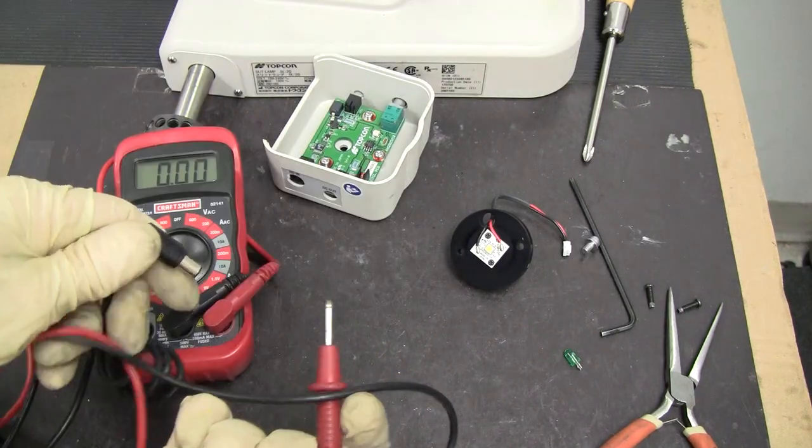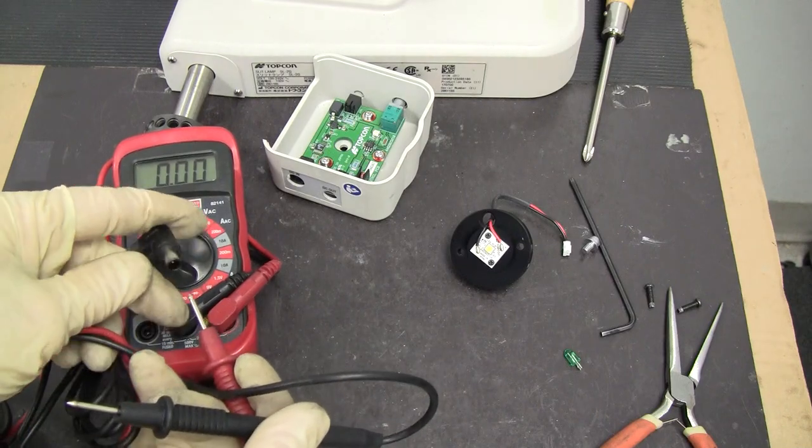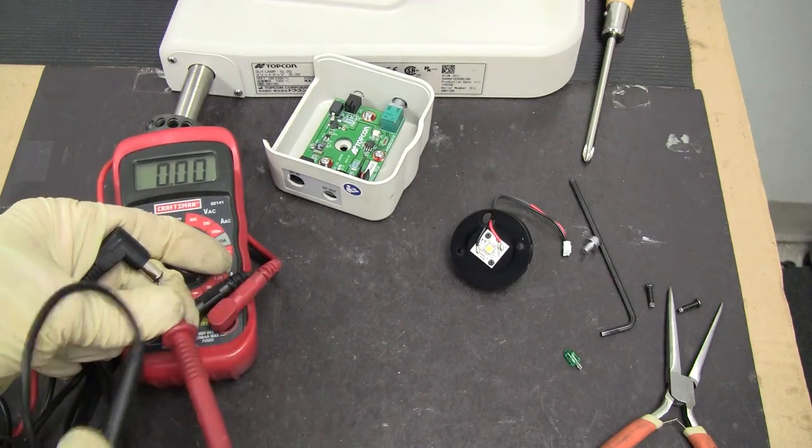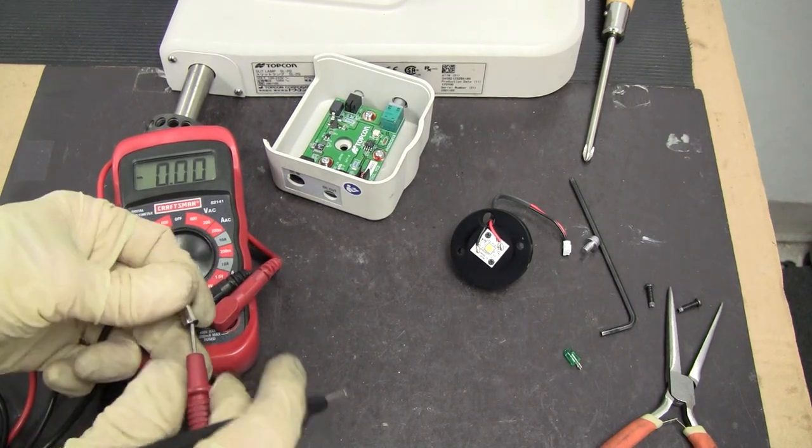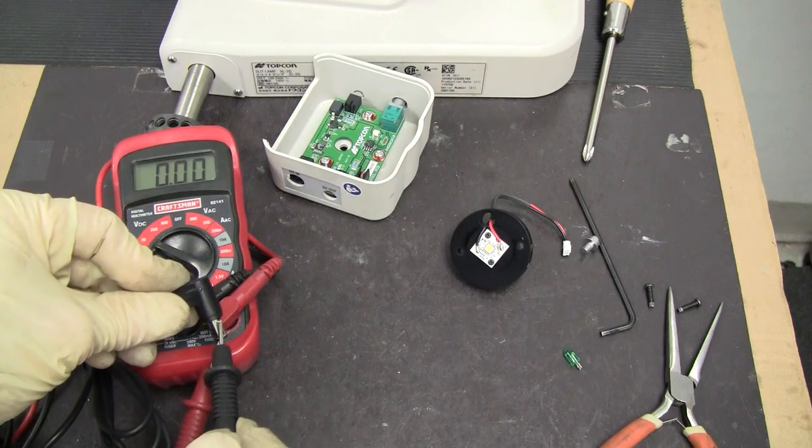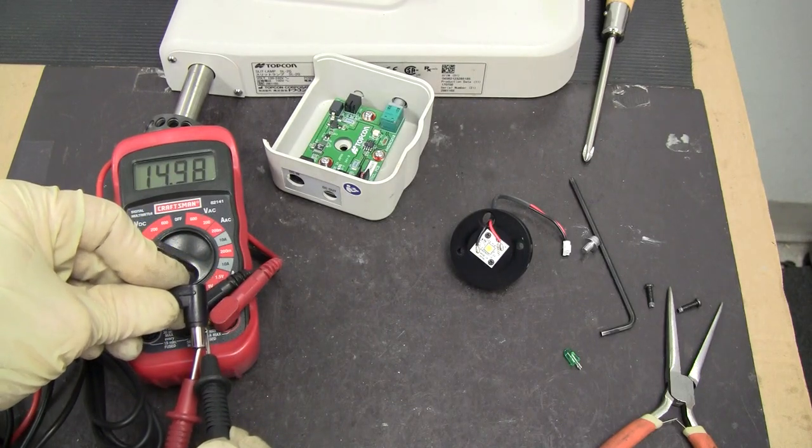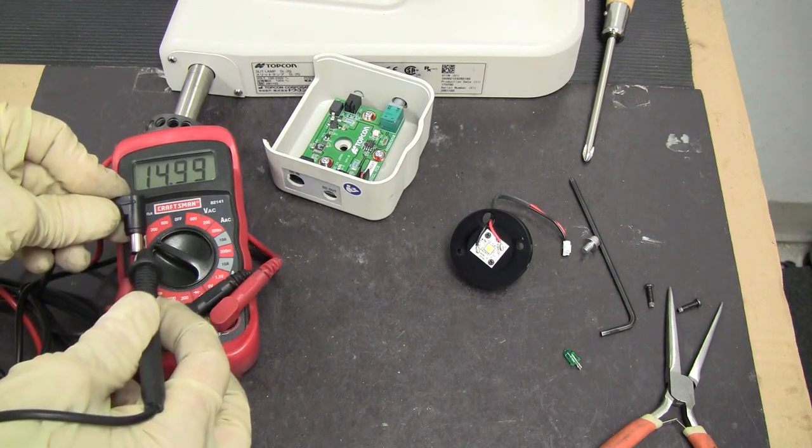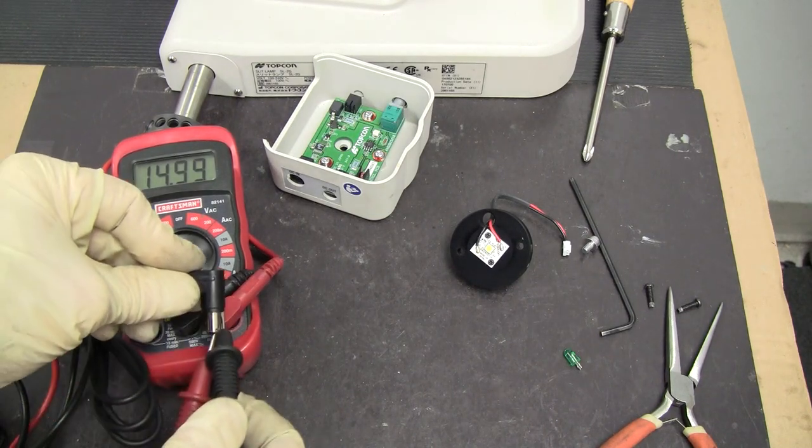Plug it in. The hot is going to be on the inside. We're reading 14.99 volt DC.